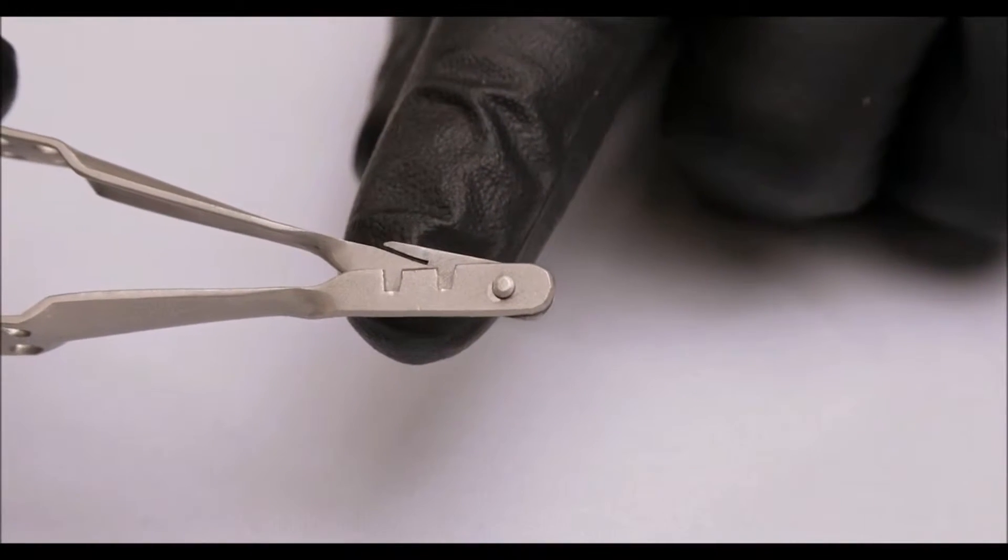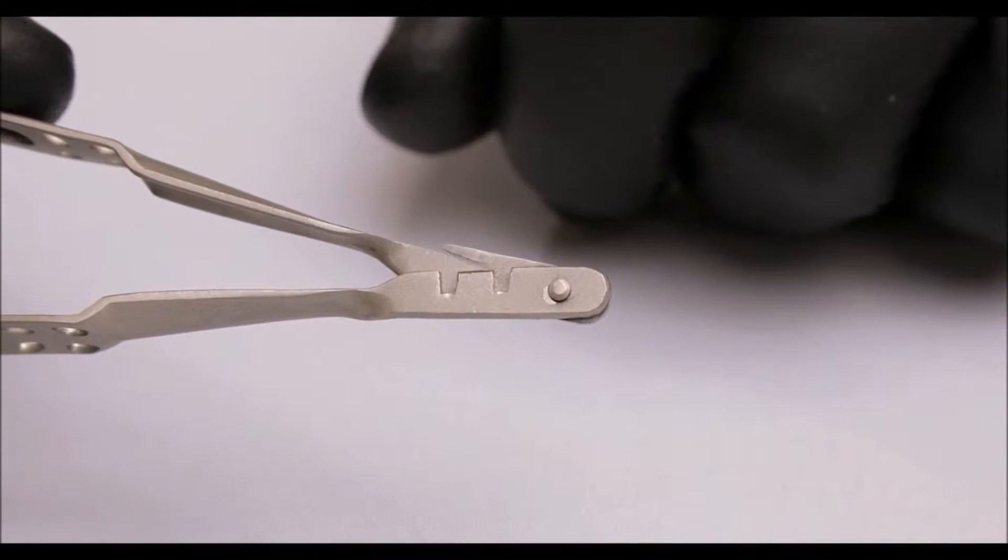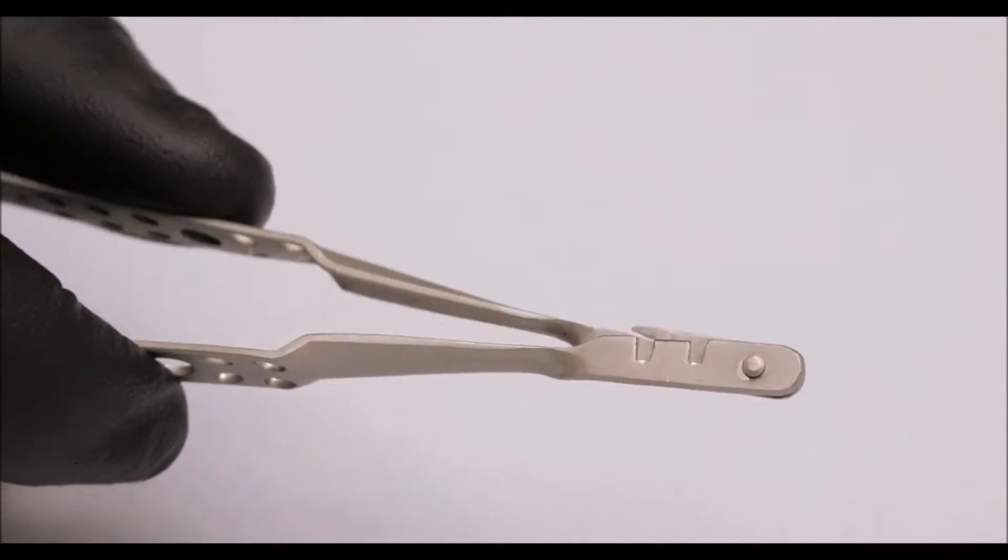A suture cutter, the safest suture cutter in the hand of your assistant or anyone else in the world for that matter.